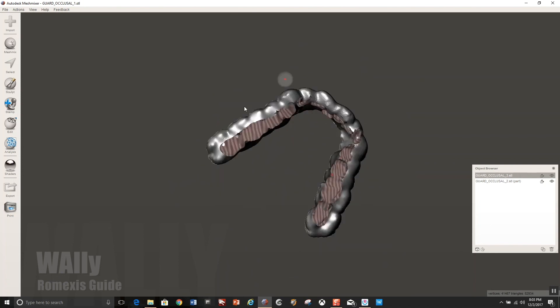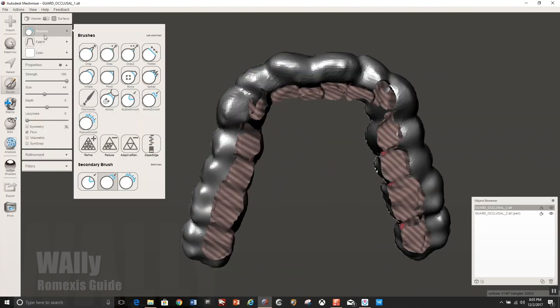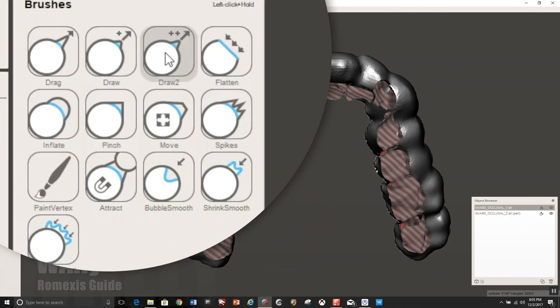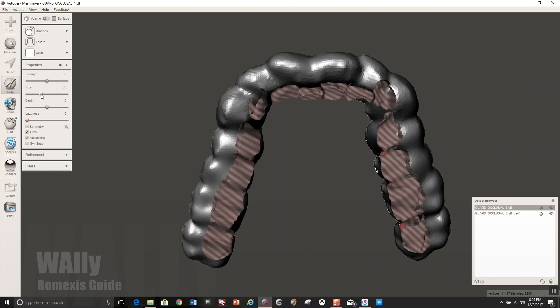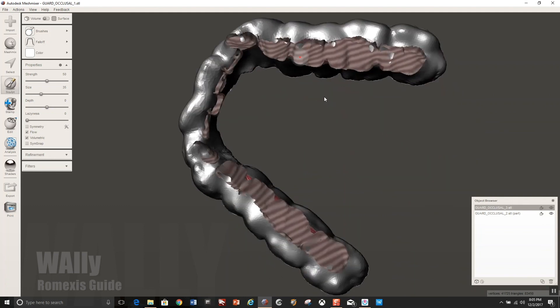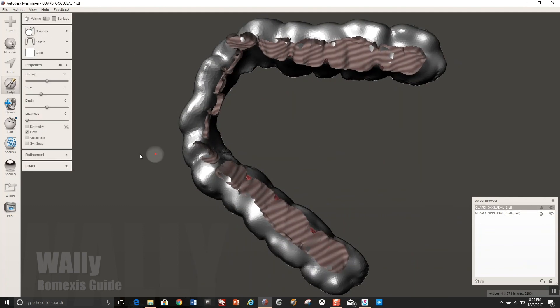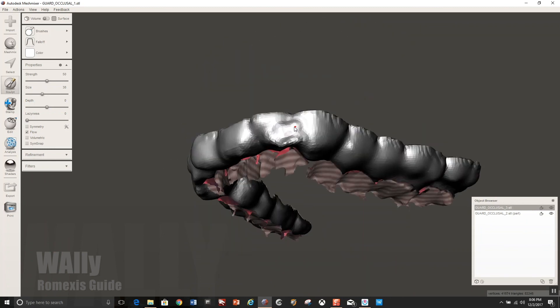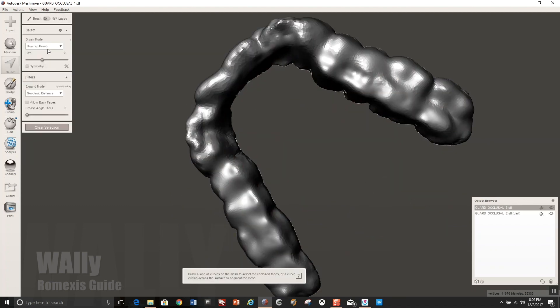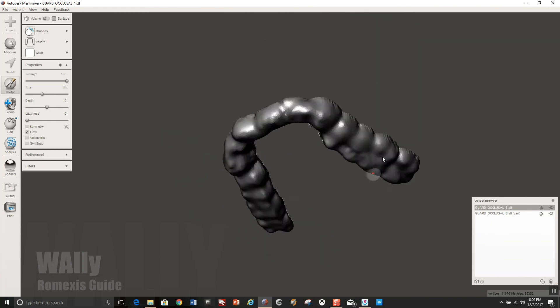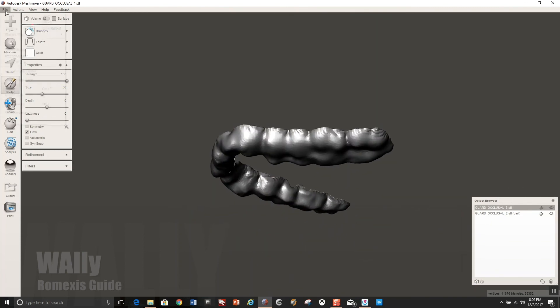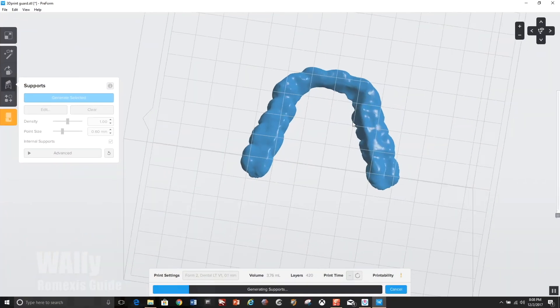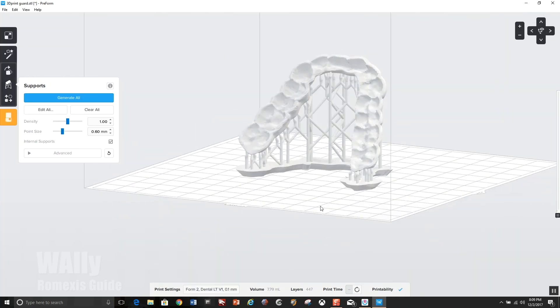Make sure you unselect volumetric because if you look here, I forgot. And now I'm going to go back, hit control Z and do it again, because it would have distorted the inside of the intaglio, the guard. I'm just adding material here. And I'm going to smooth that out. And that's going to give me something to customize in the mouth. That's it guys guards done and export that file as a STL and load it into whatever your favorite printing software is. And easy peasy, all done.